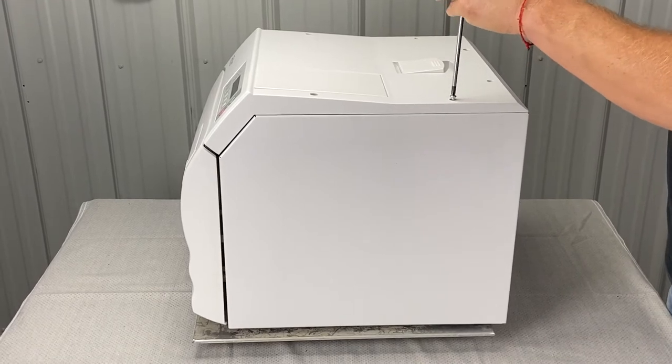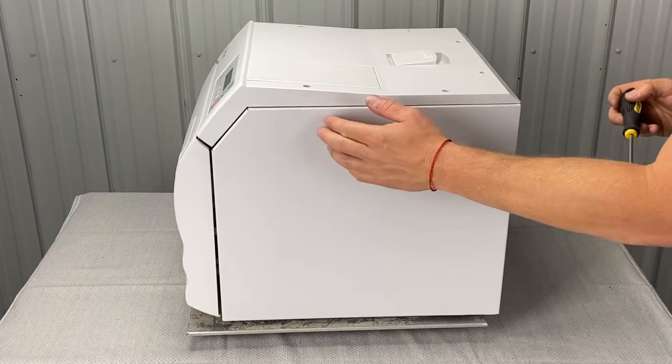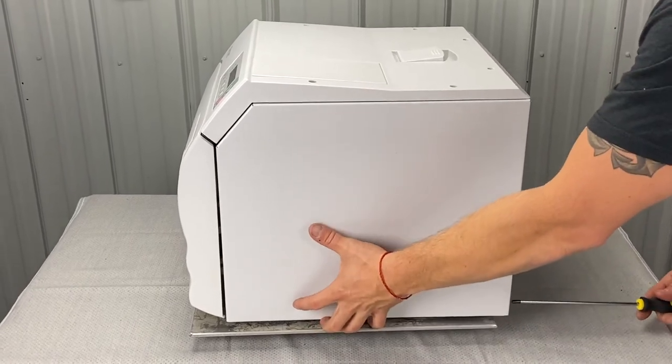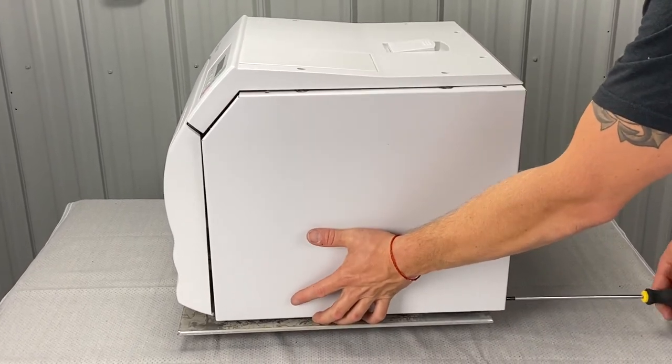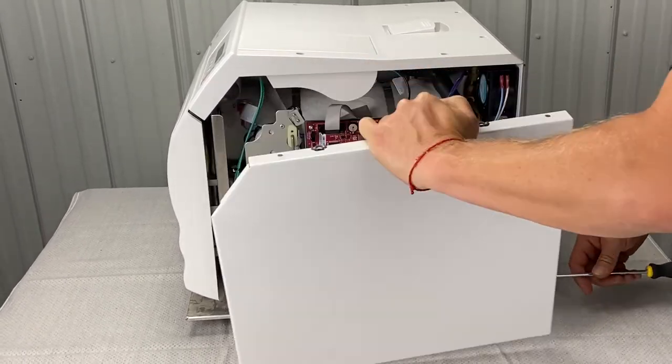One here. As you can see it's coming out now, so we'll also have to do the bottom so the panel doesn't fall down. As you see it just fell down a little bit — hold your hand there. It can fall down; it's not a huge deal.